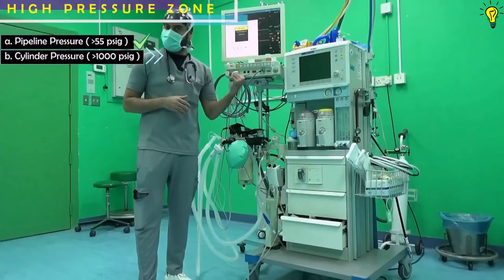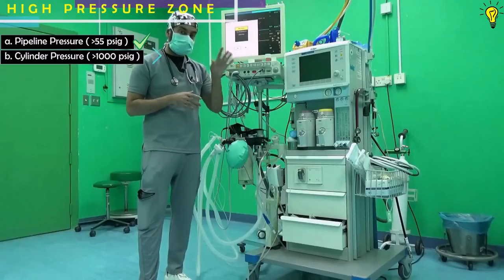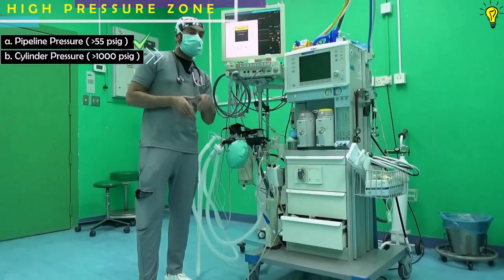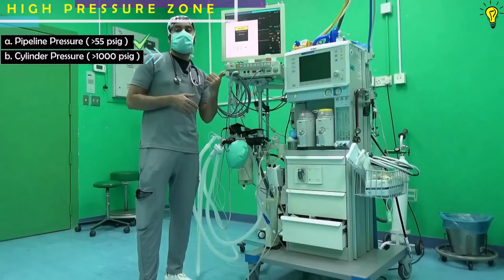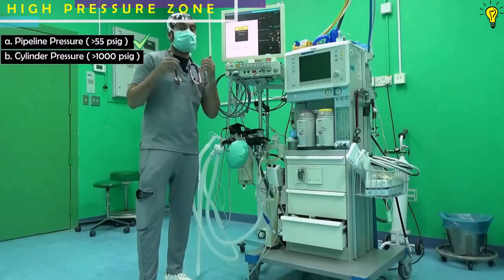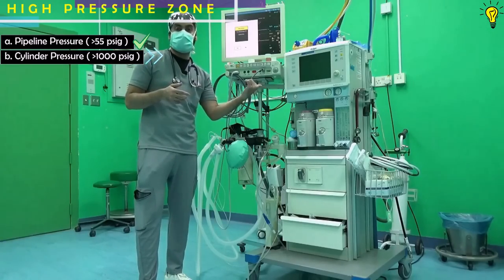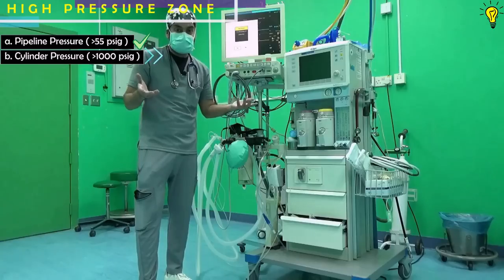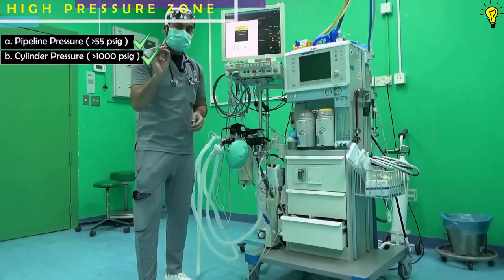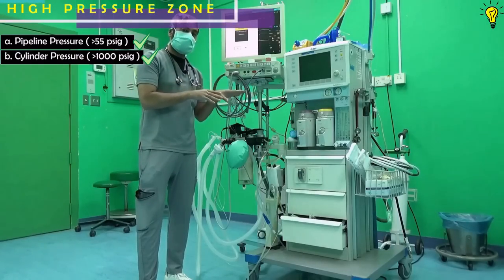Remember to close the oxygen cylinder after checking, because some machines are pneumatically driven. If the pipeline pressure falls, you might not know, and the machine might be using the oxygen cylinder. So in an emergency, when you go to turn on the oxygen cylinder, it might be depleted. A minimum of 1000 psig must be available at all times.